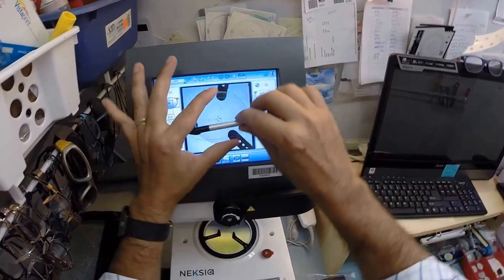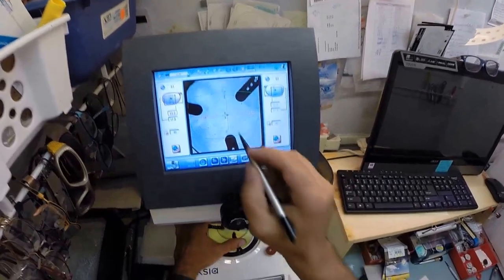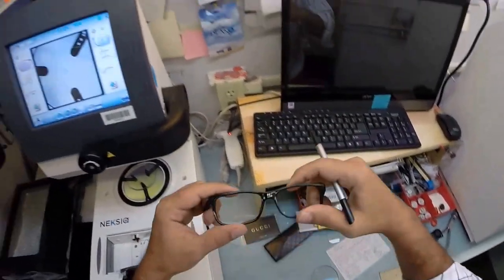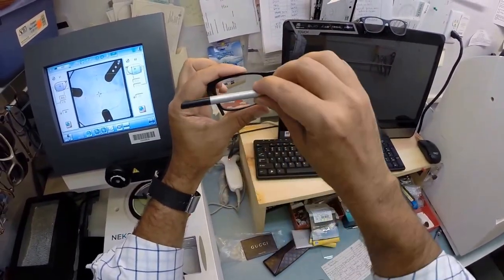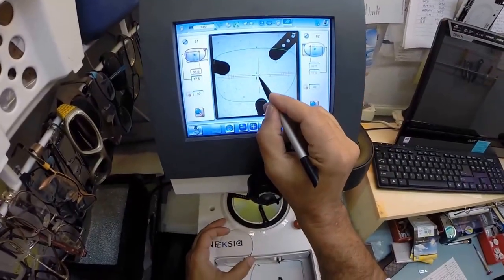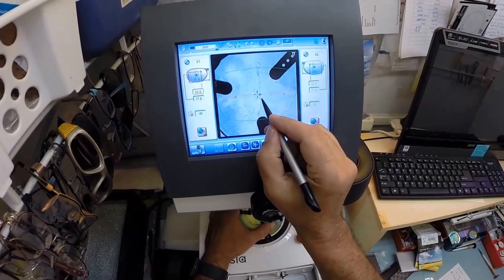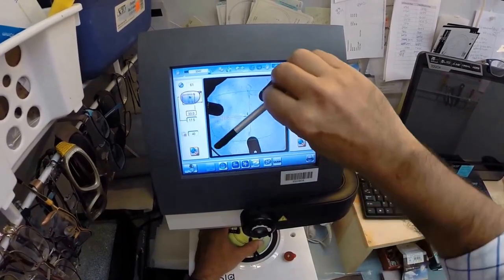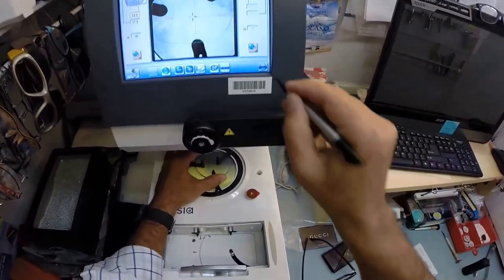Now, the reason why I put those three dots in there is your lens has to be oriented in there just perfectly. If it gets off kilter, you're just not going to see as well. So that's why I put the three dots. Now this blue cross is the geometric center of your frame. If you were to measure vertically and horizontally, you would come in dead center. That's where that blue cross is. Your pupil is just inset from there. There's a little orange cross.